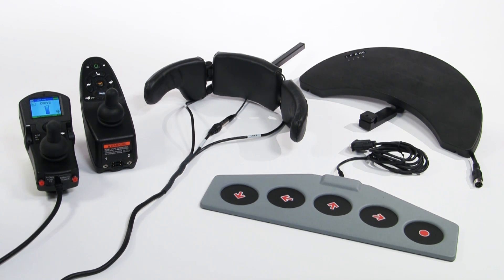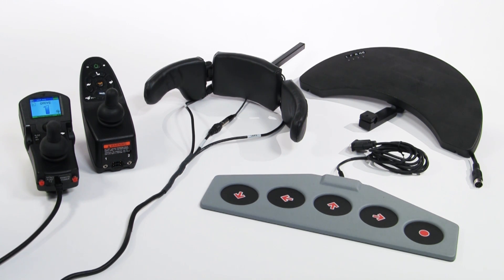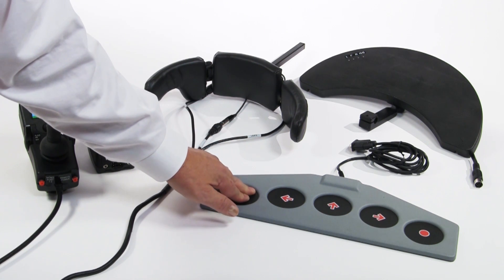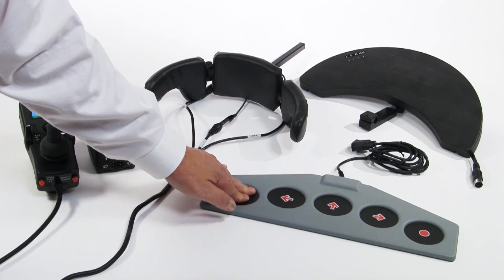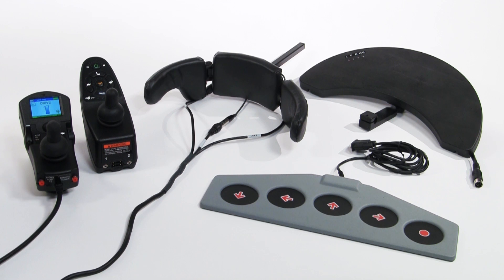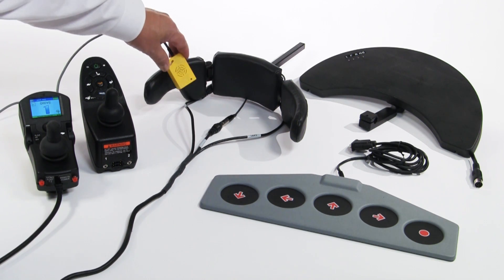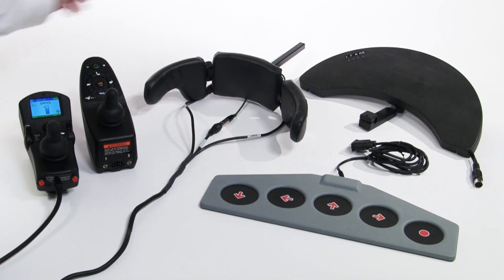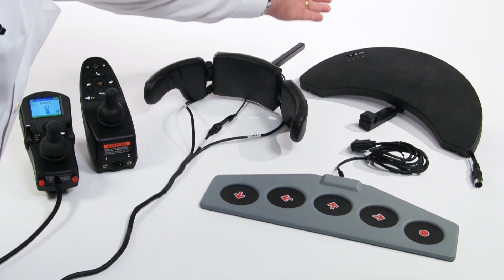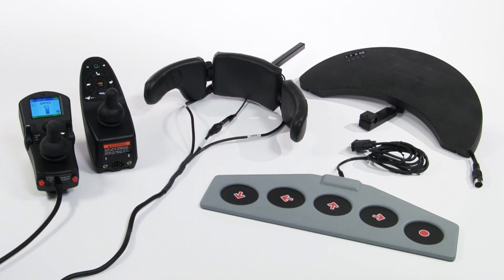The types of switches that can be incorporated into a digital driver control include both mechanical switches that require contact with the switch for activation, such as this wafer board, or electrical switches such as this proximity switch in the wings of the head array, or fiber-optic switches in this tray that require only getting close or covering the switch to activate it.